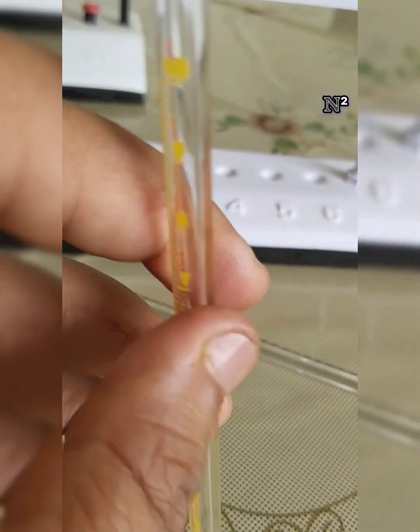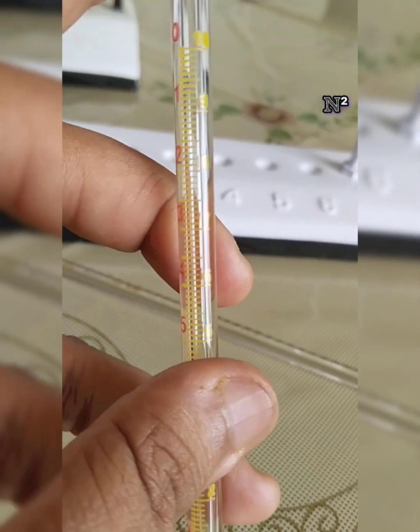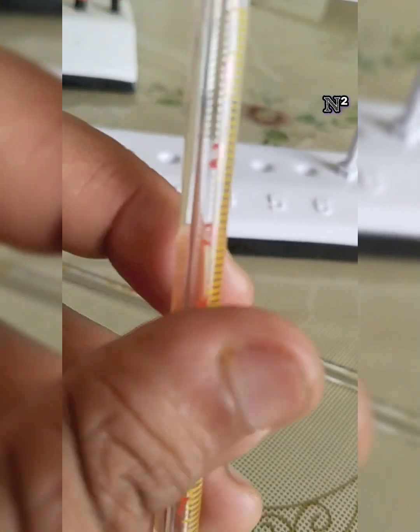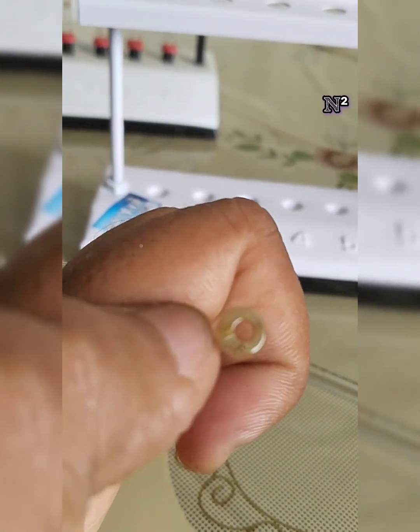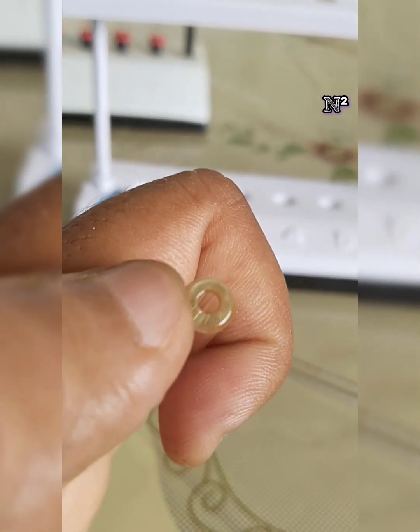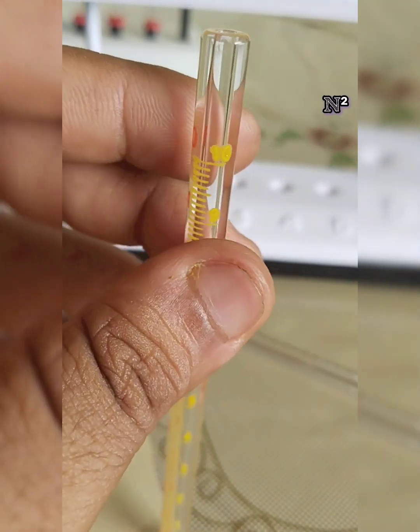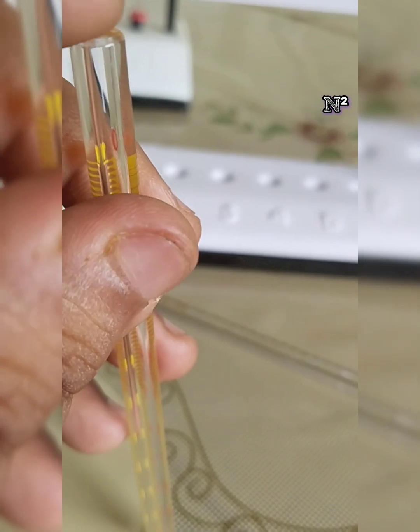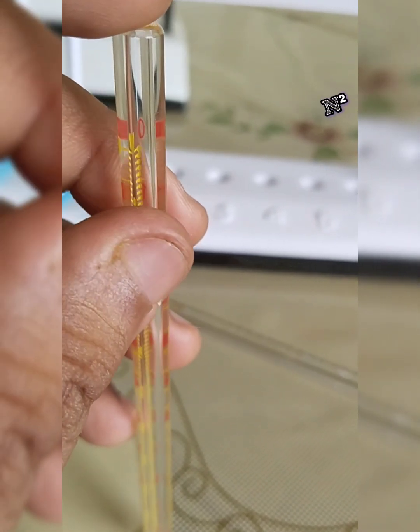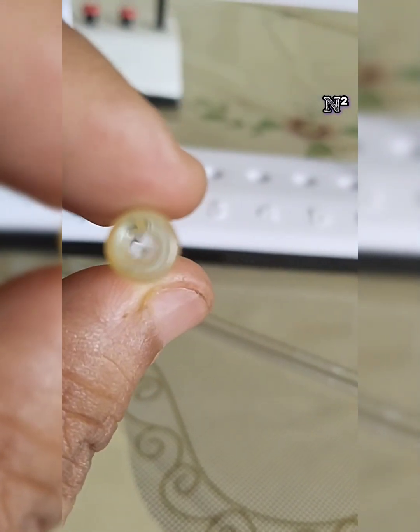Obviously you are going to use this tube not only for ESR but also for the packed cell volume experiment. For the ESR, we use another interesting pipette. It is a very thin bore, a very narrow bore tube. A usual dropper or any easily available instrument won't be able to insert the solution that you are going to keep inside this tube. So we need a special instrument called the Pasteur pipette.